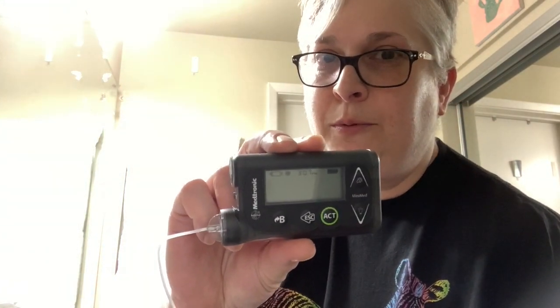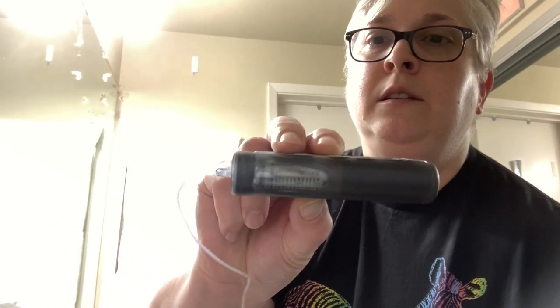I'm going to show you the mechanics of getting Forteo mixed into a new kind of reservoir for an old, dumb insulin pump. This is an old Medtronic pump — actually brand new in the box when I bought it from a guy off Craigslist — and it has its own little reservoir. You can see how much is in there; mine is almost out. I'm going to show you how to refill it. It's not totally intuitive because it's set up really well if you're using insulin — everything is sized to fit insulin vials — but sterile saline and Forteo are different sizes.